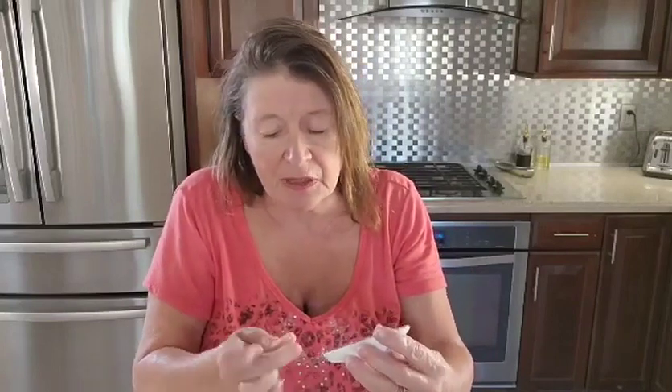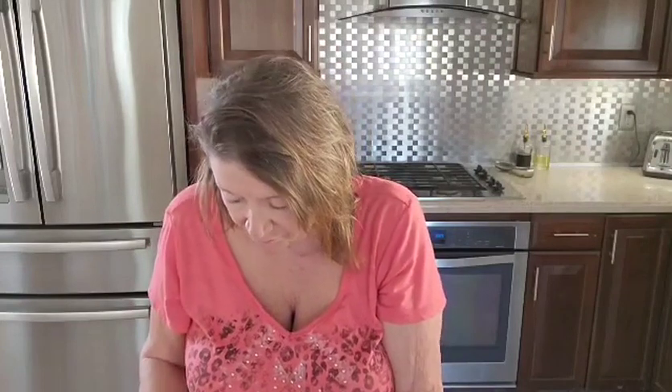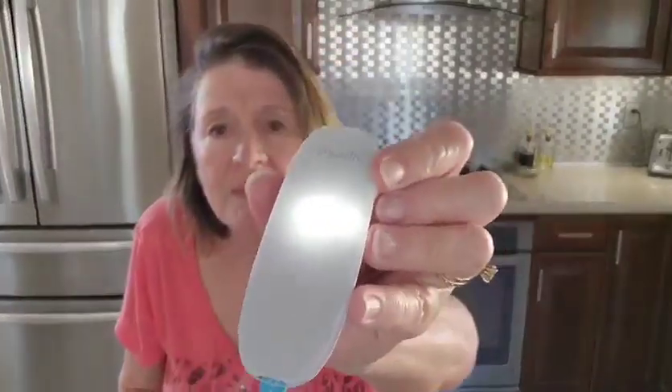And it's going to give us a reading. Let's go ahead and get a little bit more blood. It's reading right now, counting down as you can see. And then it's going to tell us — my blood — it says that it's 104. That's fantastic! I'm very, very happy with that. I think this is a great unit to carry along with you, especially since it's so small and comes in this travel kit.